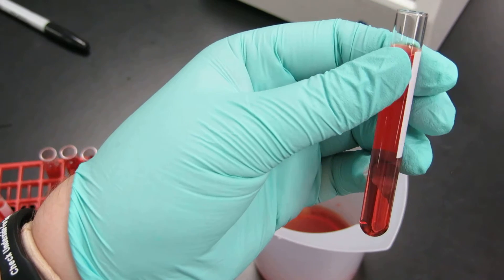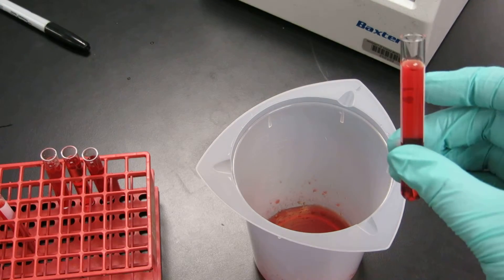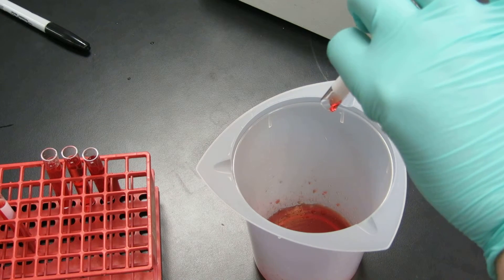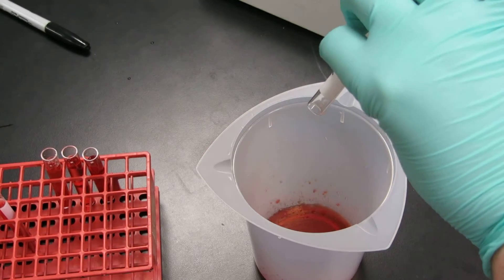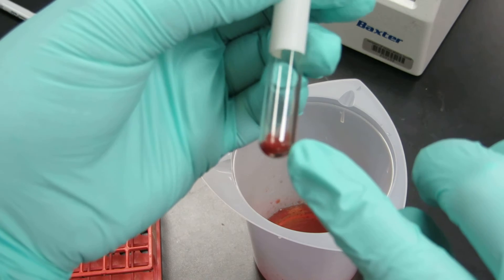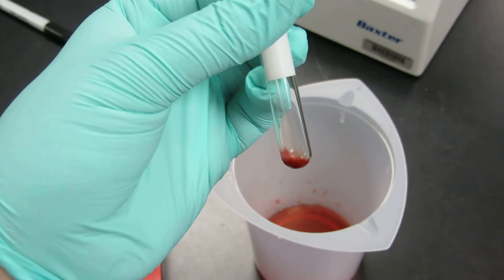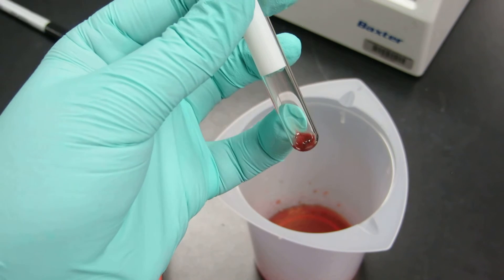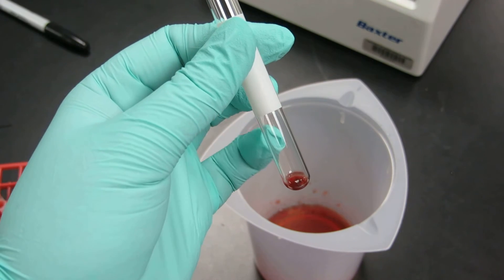This is why it's going to be really important to make good cell suspensions. Now after the fourth wash, when we go to invert, we're going to tip it over. But before we tip it back, we're actually going to blot one time with a piece of gauze to get that drop that's at the end of the tube. This is called a dry button. Notice that mostly you just have dry cells left in the tube. This is really important because when we go to add our next reagent — typically anti-IgG — it's going to have maximal contact with the red cells, which is what we want. This is called a dry button, and it's done after the fourth wash during IAT testing.